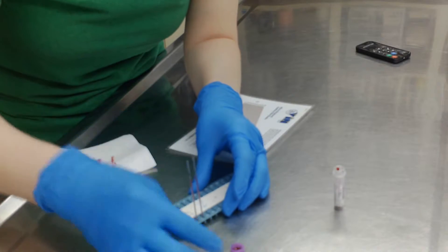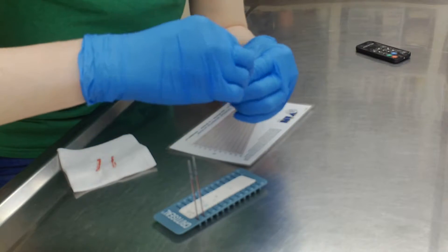All right, and the next thing I'm going to do is spin them down in the centrifuge, and I'll show you how we do that.